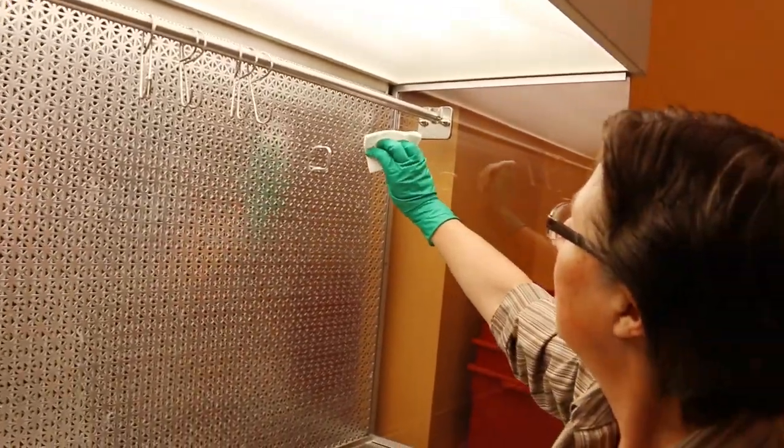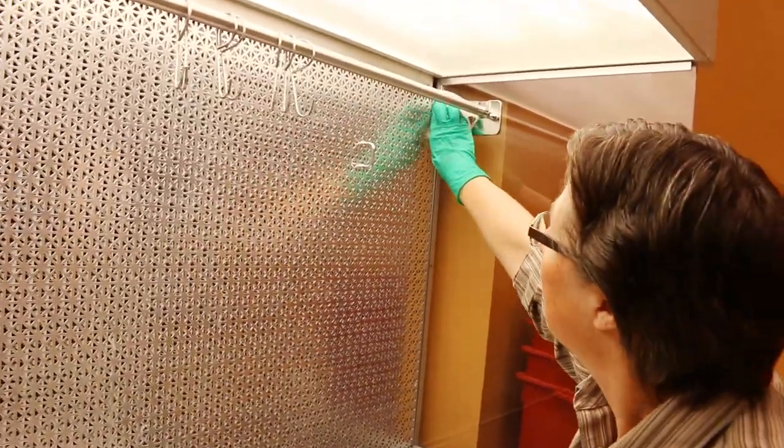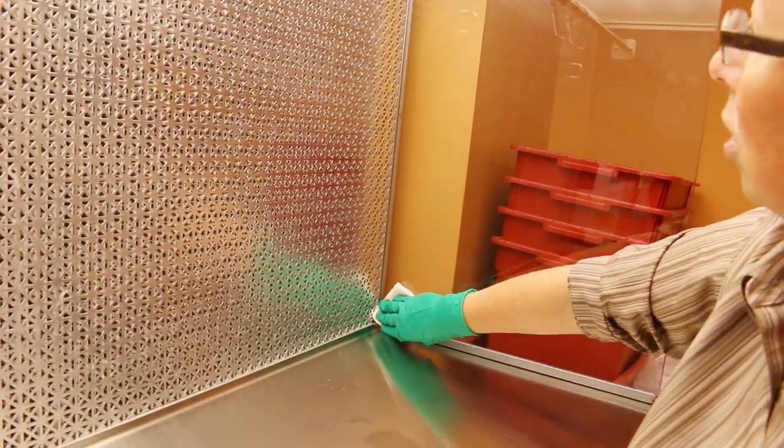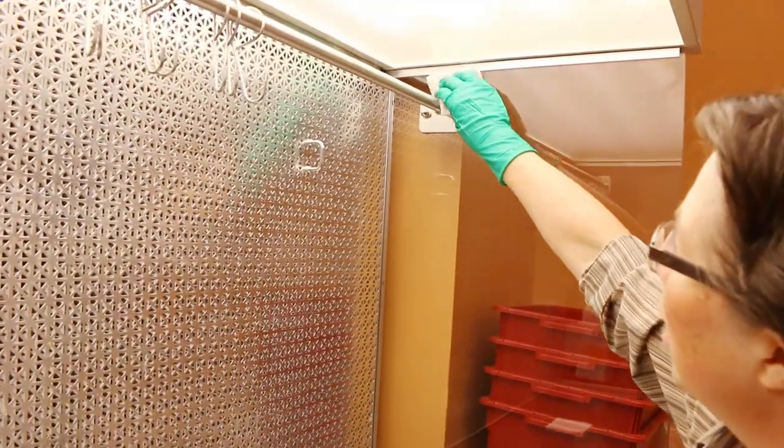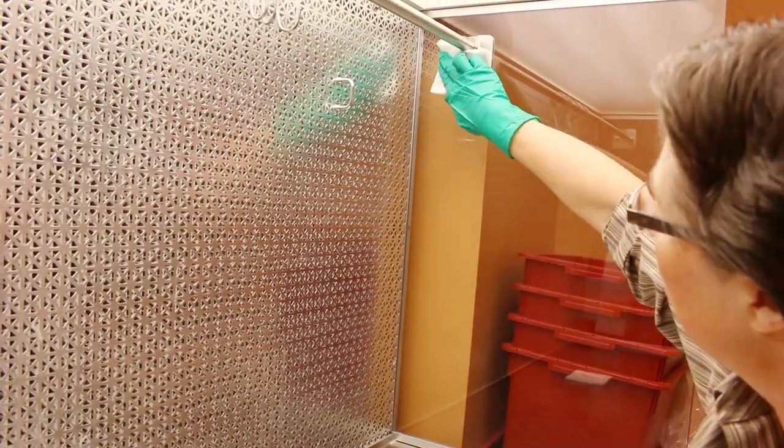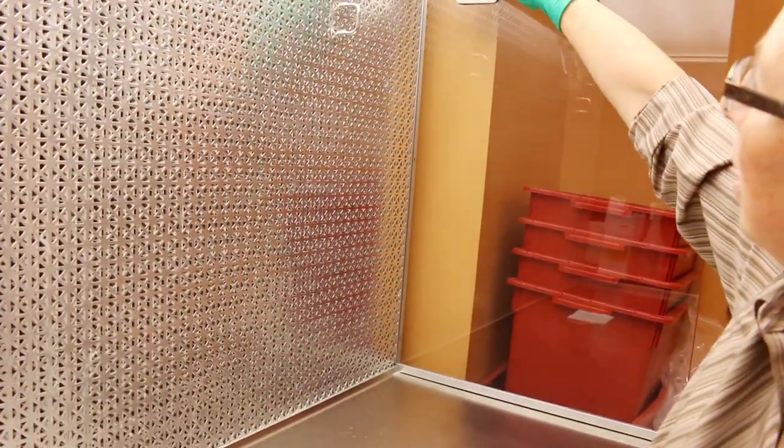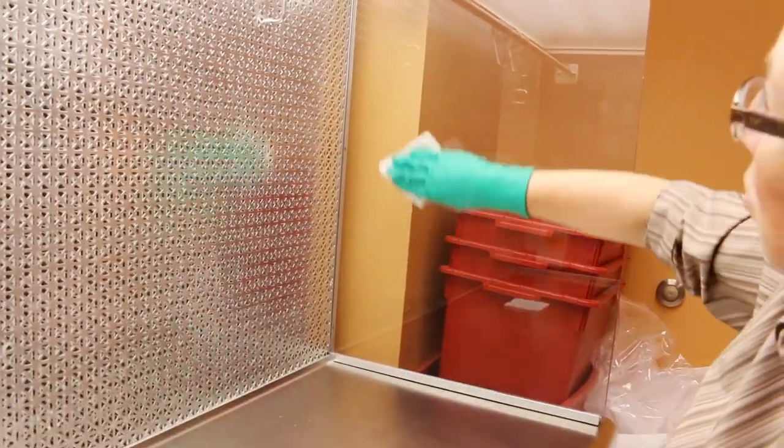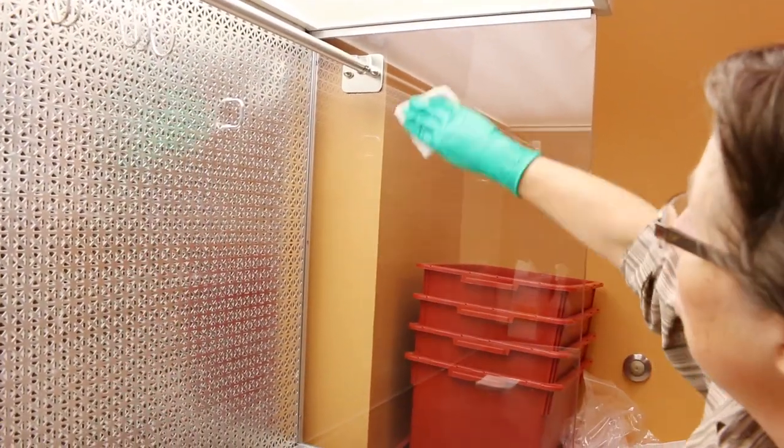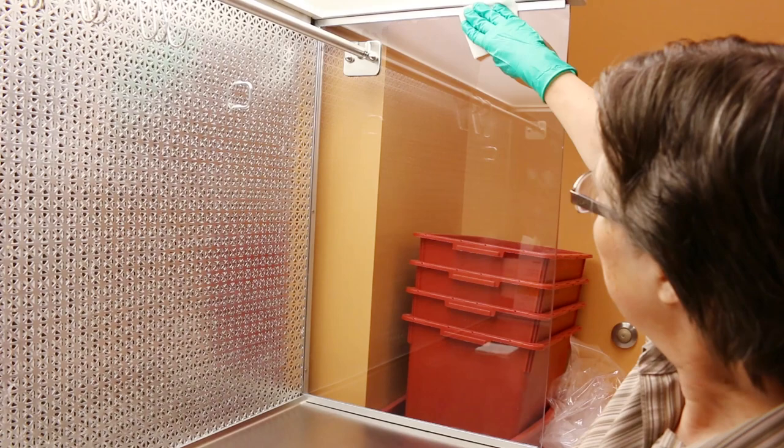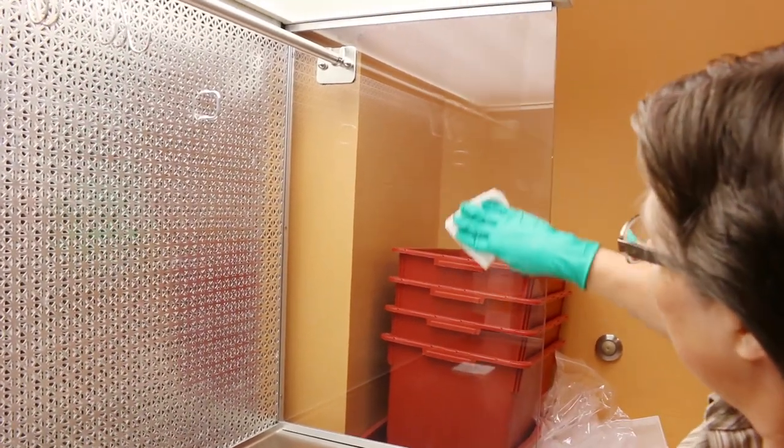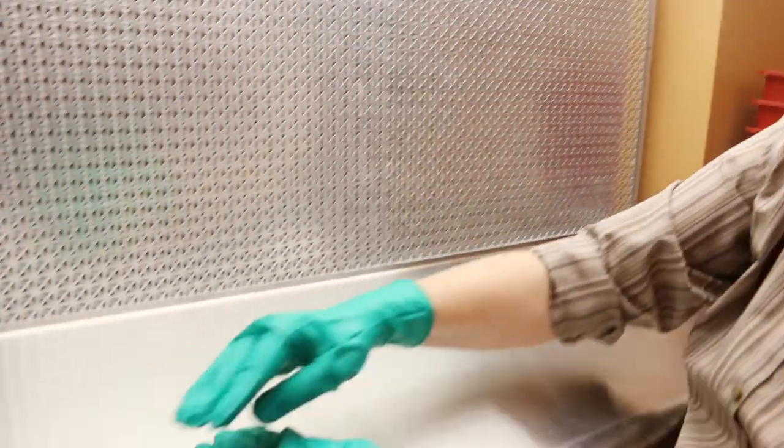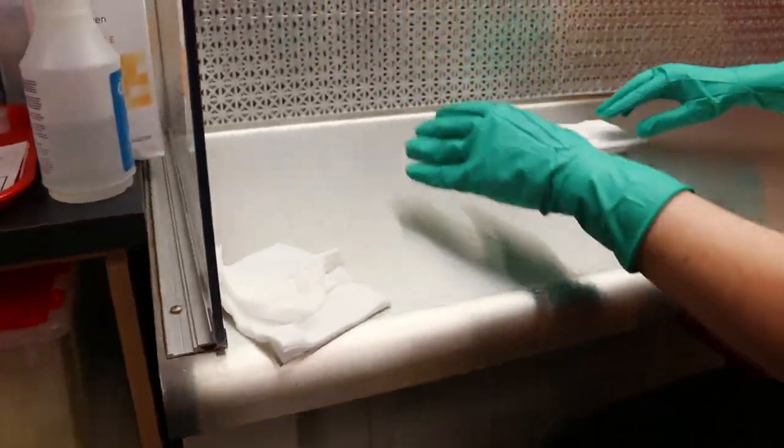You grab a new set of wipes. You would then clean the bar and the hooks. After that, I'm going to clean the side walls, starting at the top and going down, covering every exposed area inside the hood, with straight strokes, no S-turns, going from top to bottom, from the back of the hood to the exposed nose part of the hood. Then you would repeat on the other side of the hood.